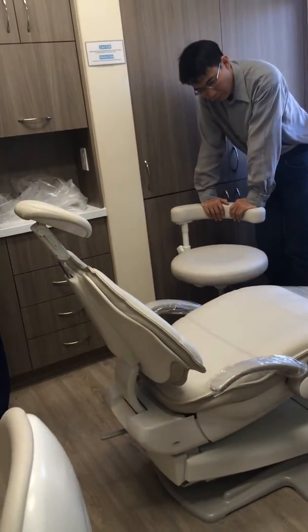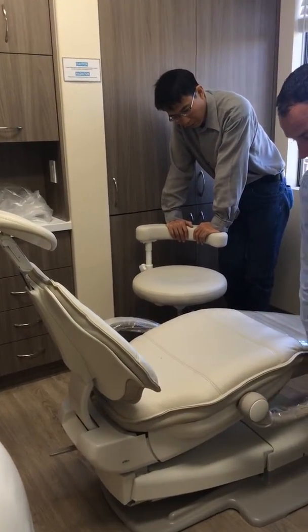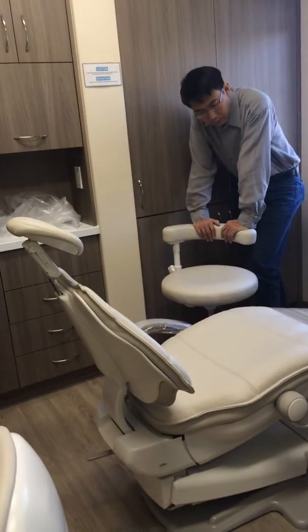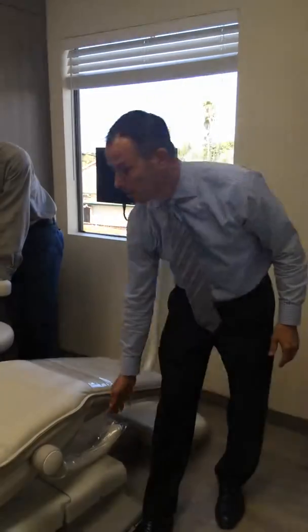Okay? What I would recommend is, because typically this is the side the patient comes in, either way, whatever you want, just make sure when you're exiting them, you drop the armrest out of the way, because otherwise they're going to try to push themselves up on it, and if they're a bigger patient, over time we could break them. It's not designed to break, but we've had that happen in the past, so just note to self, okay? Okay.